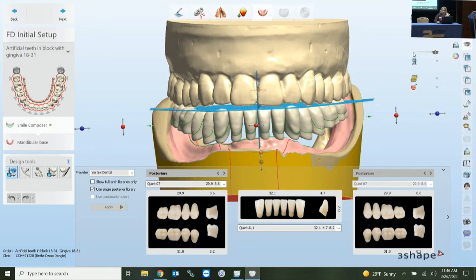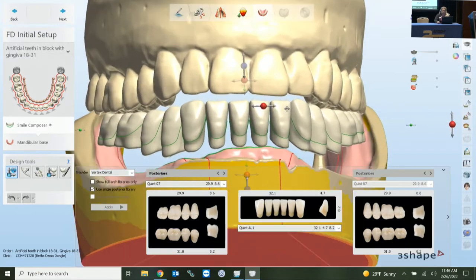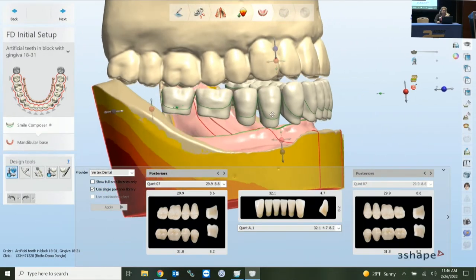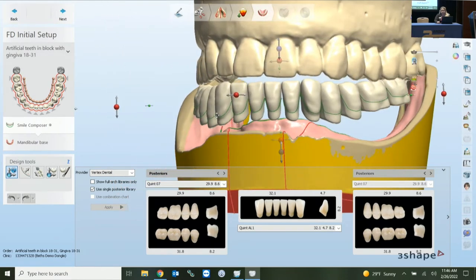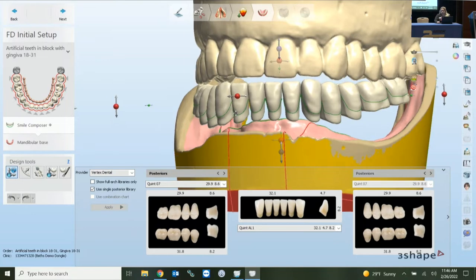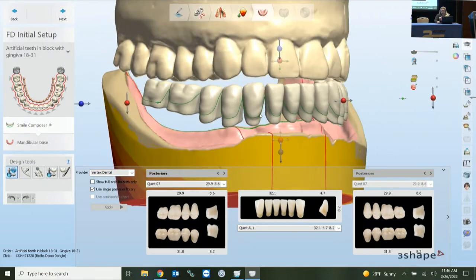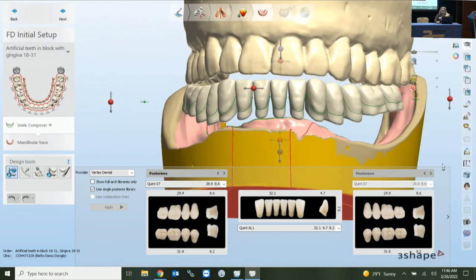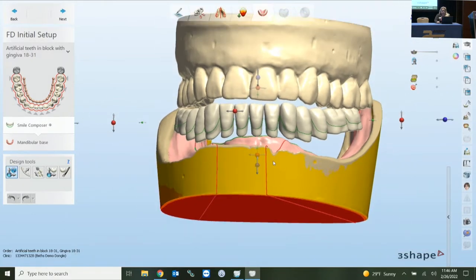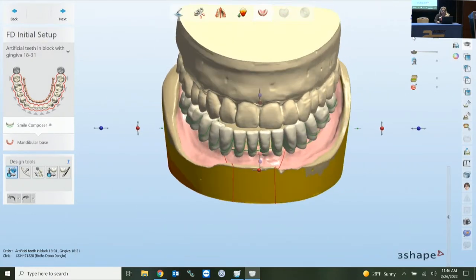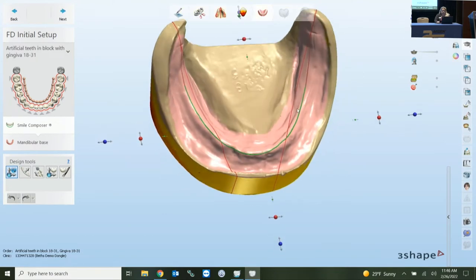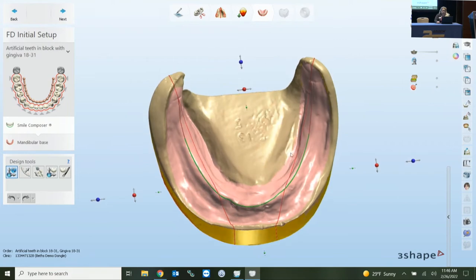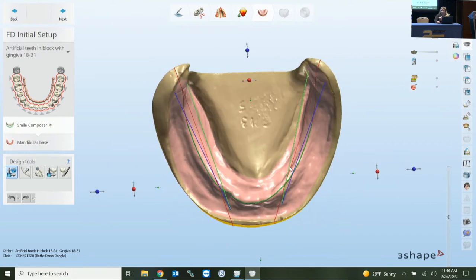As you rotate around, you can see the planes have been inserted. The visuals on the right give you the ability to turn those on or off. Zooming in, the green spline around each tooth is the visual indication of where your gingiva is going to go up to. You can tuck the library panel away to keep it out of your visual way. The lines showing are based on your model analysis — it's putting Pound's triangle in there for you.